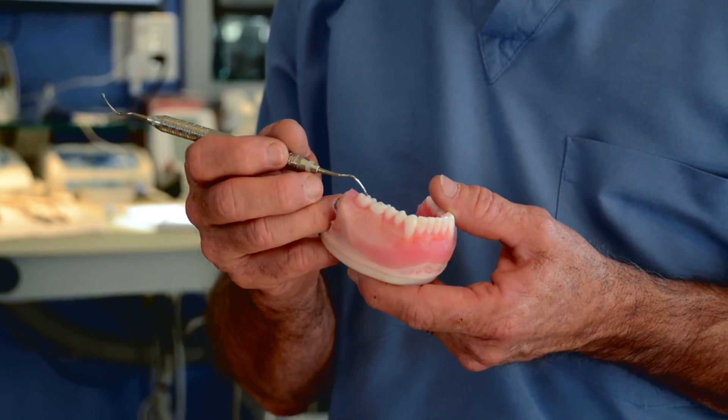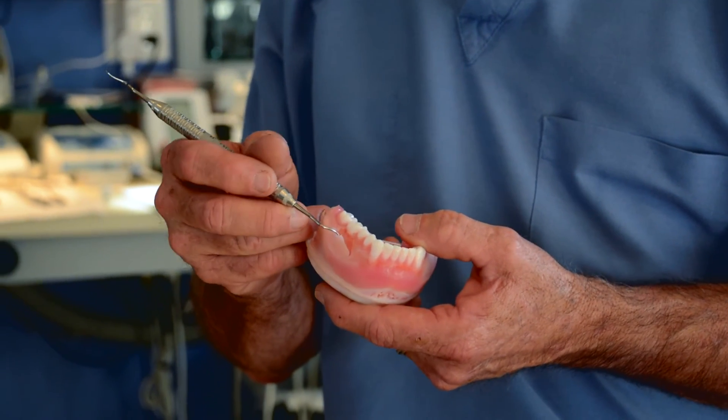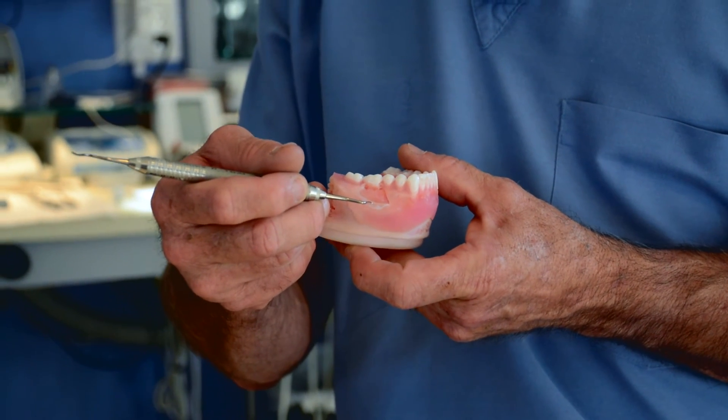In this case, you can see that we've removed two of the teeth — the first premolar and the first molar. In the first premolar area we would teach an immediate implant procedure. In the molar area, maybe we want to teach a socket graft or a PTFE graft: we reflect the soft rubber gum tissue, put the bone graft material in, tuck a PTFE membrane in, do the cross stitch, and have a great experience doing bone grafting — setting ourselves up for an excellent implant placement later.